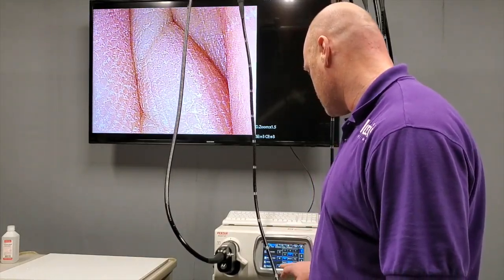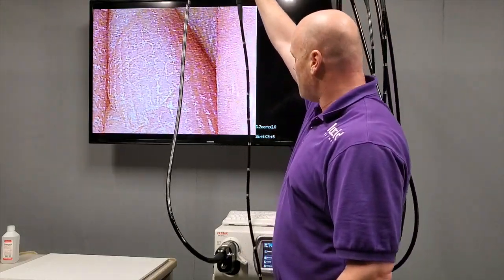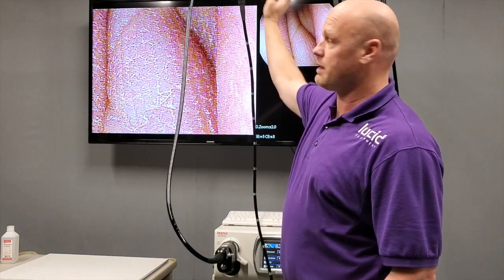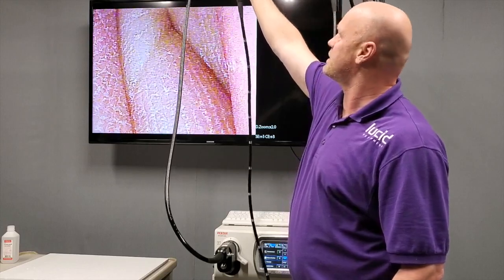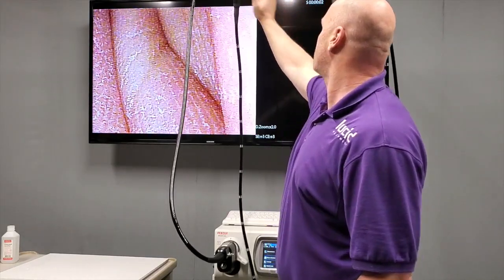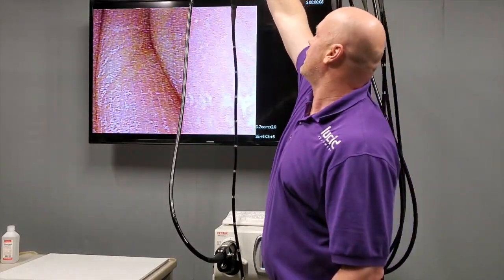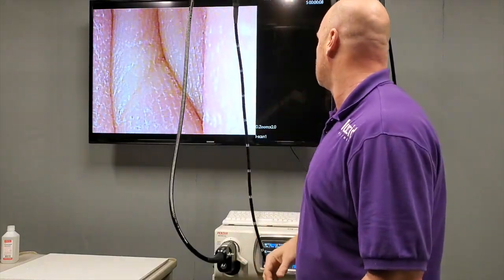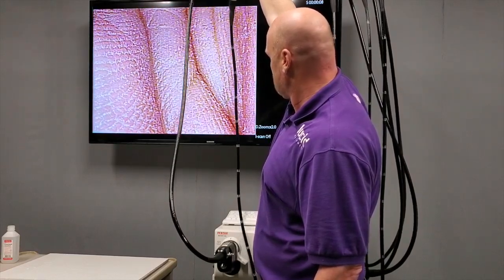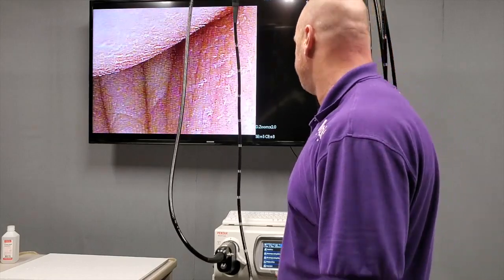Setup — image — digital zoom: 1, off, 1, 2. Let's run through the buttons. Button one is a freeze — it freezes the image and then goes to the other image. Button two is a peripheral — the printer or whatever; in this case it clears it out. Button three is the stopwatch — in the upper right hand corner, hopefully you can see the stopwatch is running. Stop that. And then digital zoom set to 2. iScan 2, iScan 3. All the buttons work. It's really in good shape.